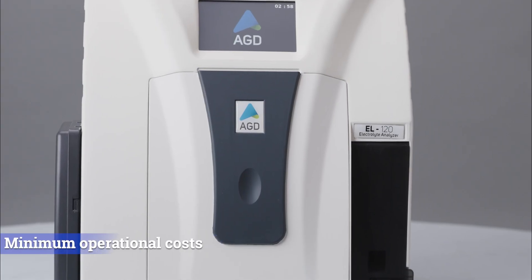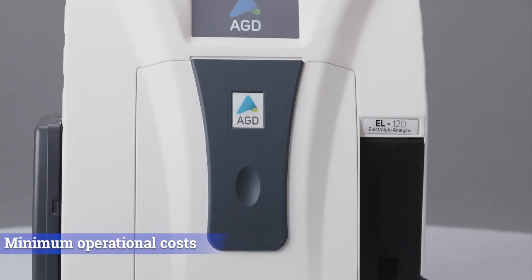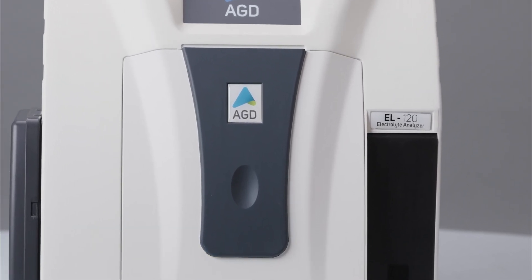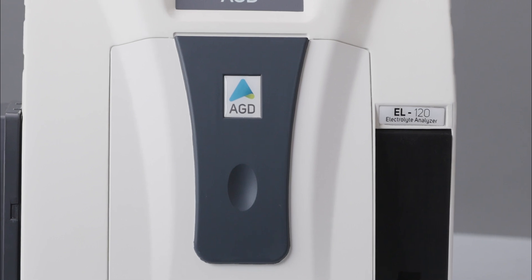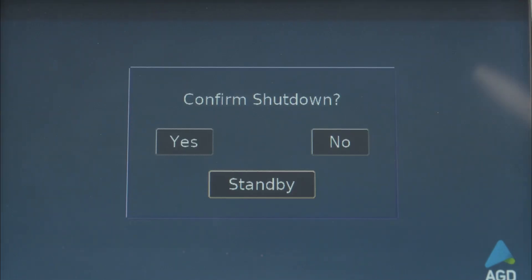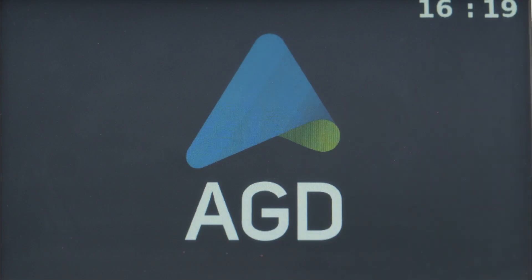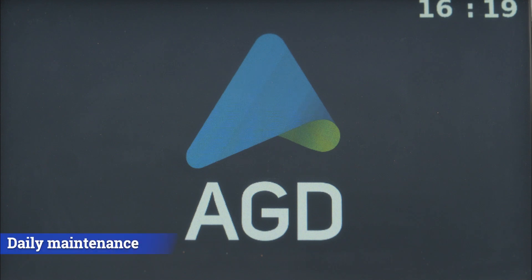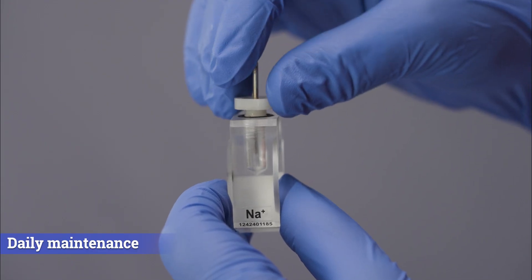Our electrolyte analyzer is designed for low maintenance, minimizing the need for regular upkeep and reducing overall operational cost. With standby modes, you have the flexibility to optimize reagent consumption based on your laboratory's requirements.